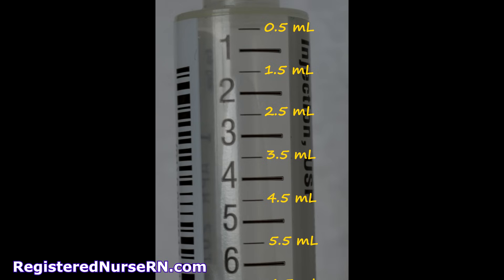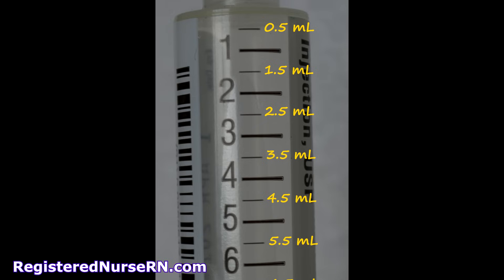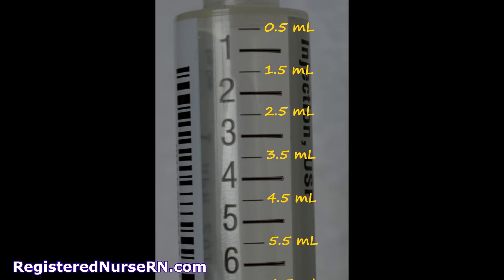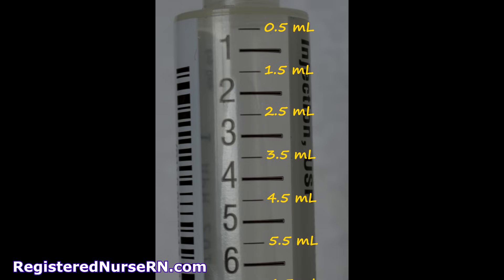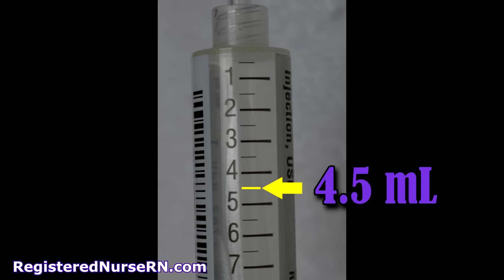Now let's go over how to read each syringe. We'll start with the easiest — the 10 mL or 10cc syringe. As you can see, the top line is 0.5 mL, then 1, then 1.5, then 2, then 2.5, and so on. This syringe measures by 0.5s. Based on the yellow line, what is the measurement? The answer is 4.5 mLs.